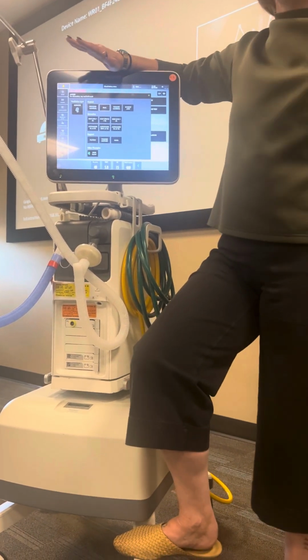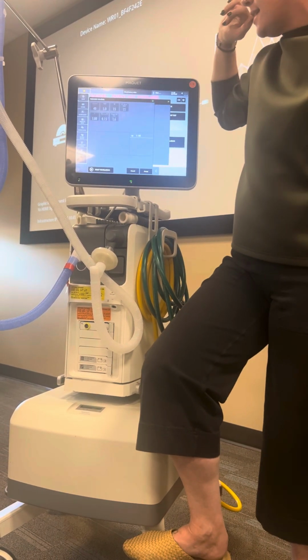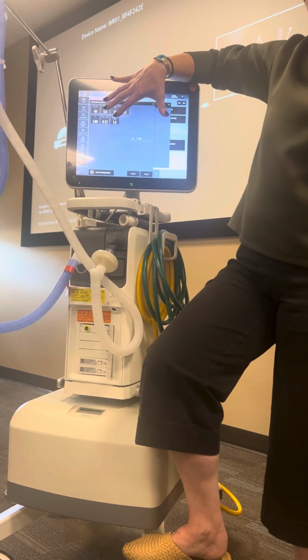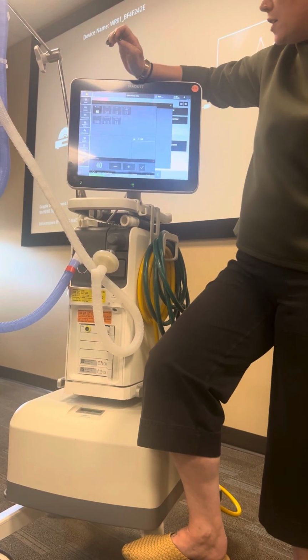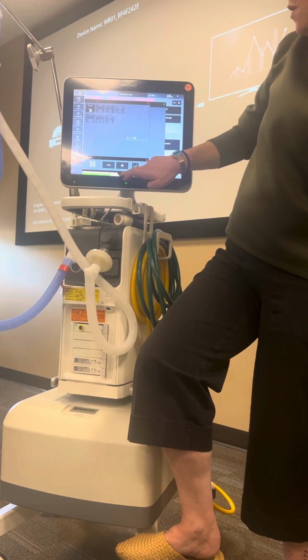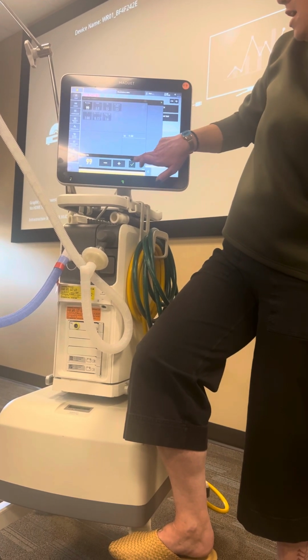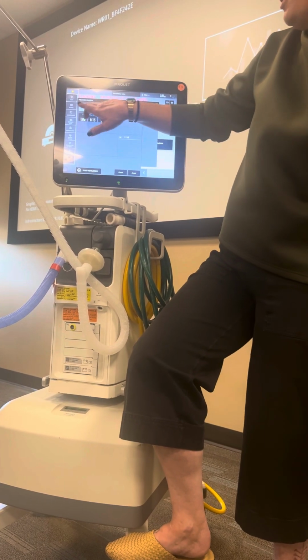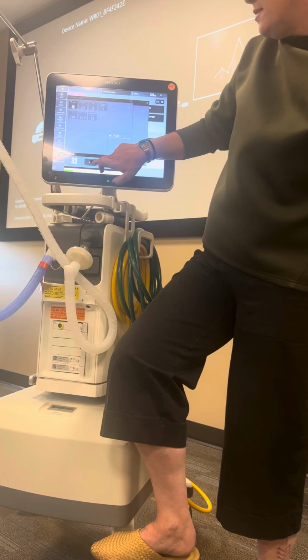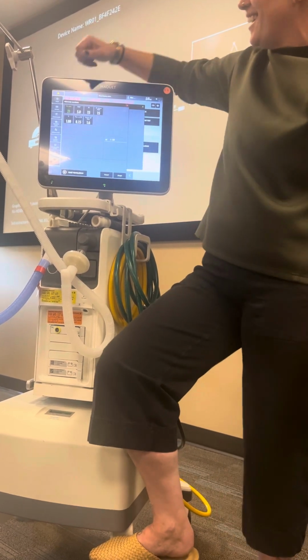So in an emergency, if you're setting this up and you're having to start with your safe start settings, we're going to select pressure control. And then we can select all of the settings we can manipulate with pressure control here. To start it out safely, we're always going to start at 100%. You can go up with these arrows, or you can drag the thing. It's going to be really mad at me, actually, because we're not connected to oxygen. So you should start at 100%, but we're going to keep it at room air.